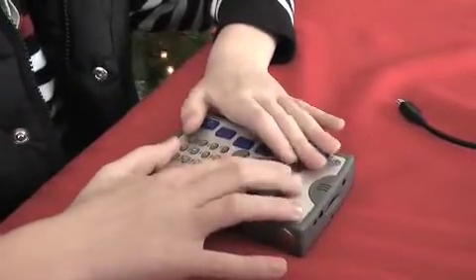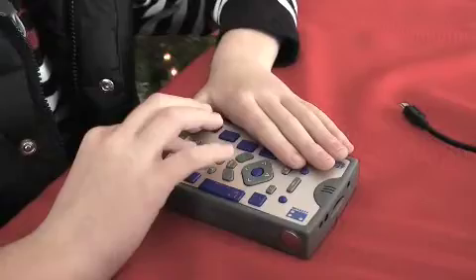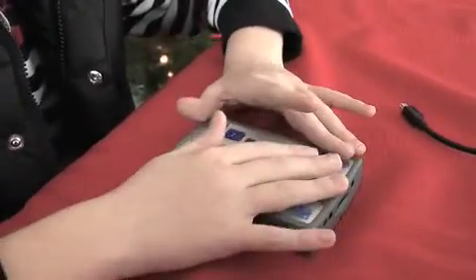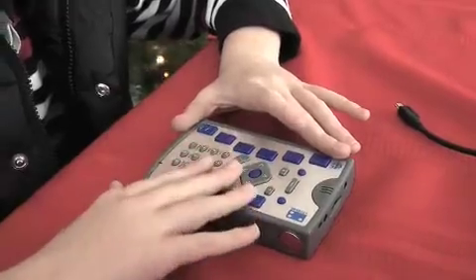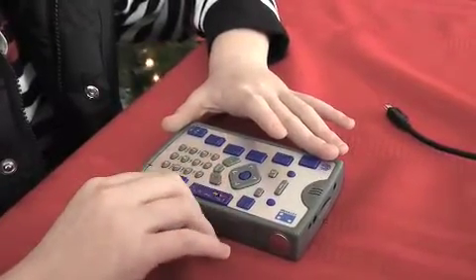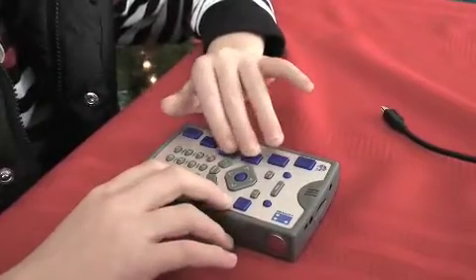One thing you'll notice is all the keys, including the telephone keypad, are all rubberized. But the Braille keyboard and the three keys, the control, shift and space bar are not rubberized. Those keys are all plastic.